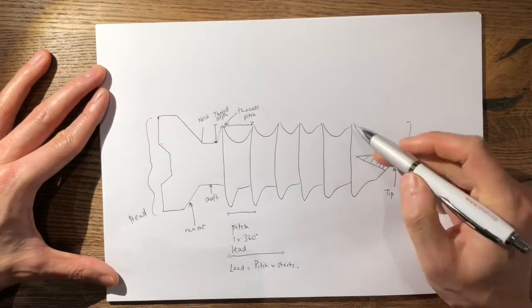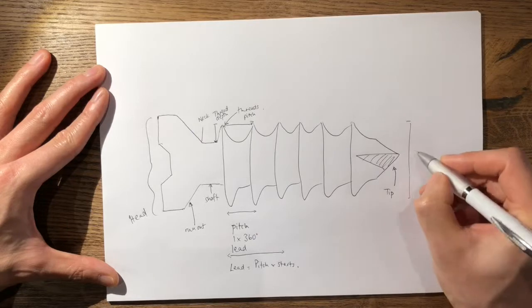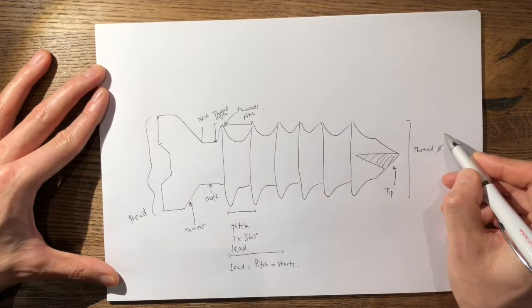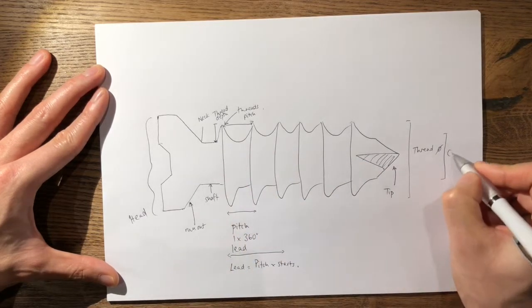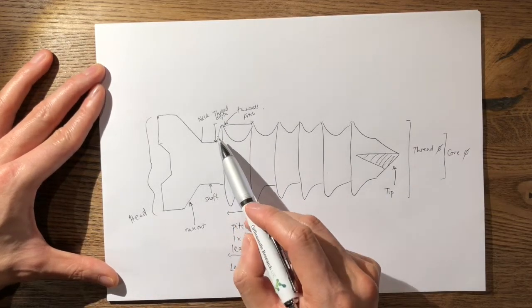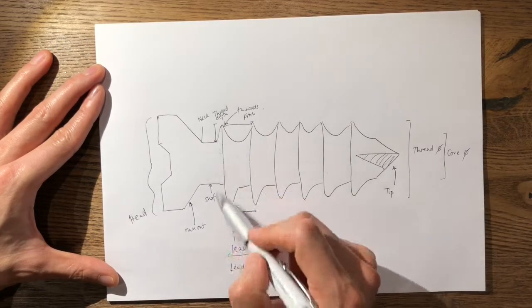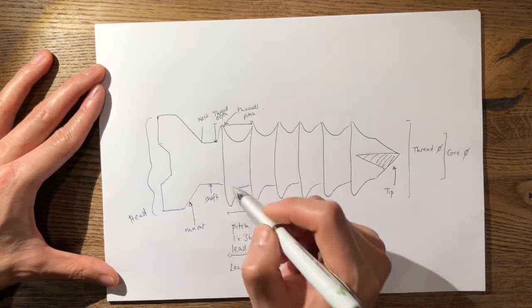The distance between the tips of the threads is termed the thread diameter, and the distance of the shaft itself is termed the core diameter. The thread depth is actually the difference between the thread diameter and the core diameter divided by two, and that is the effective purchase it has on the bone.